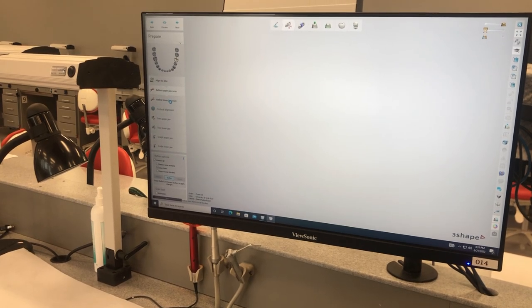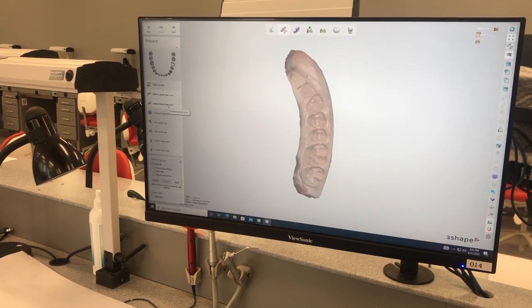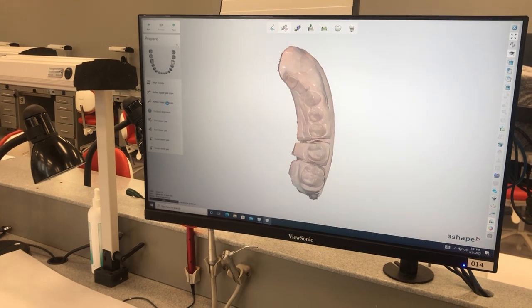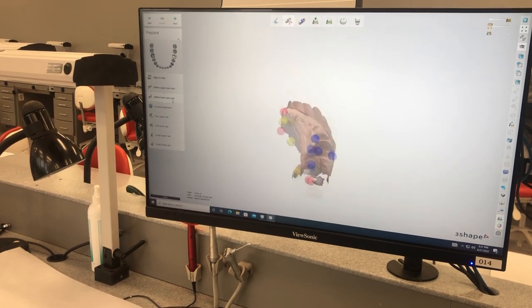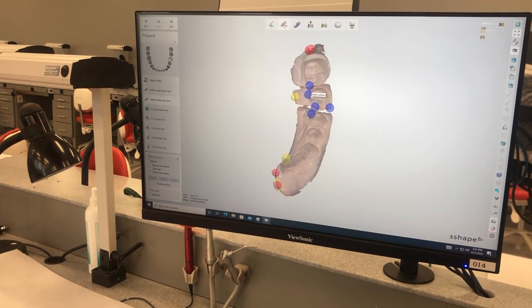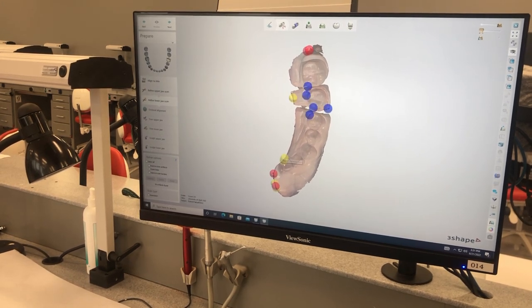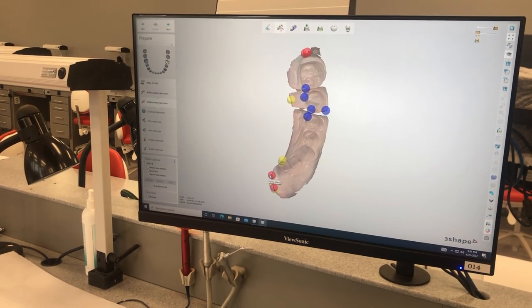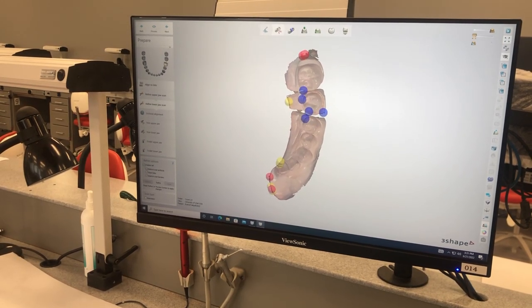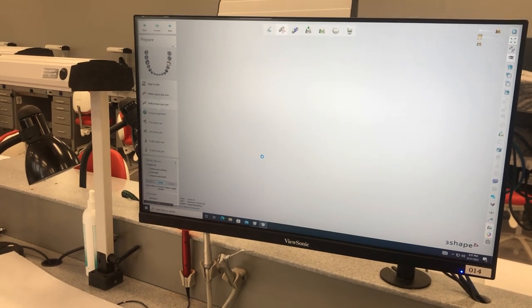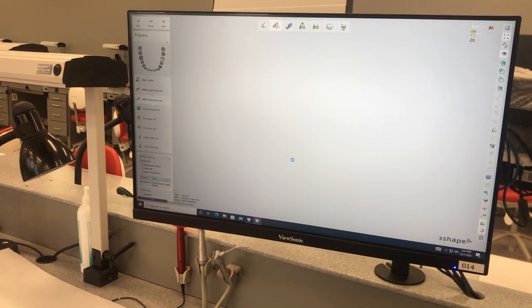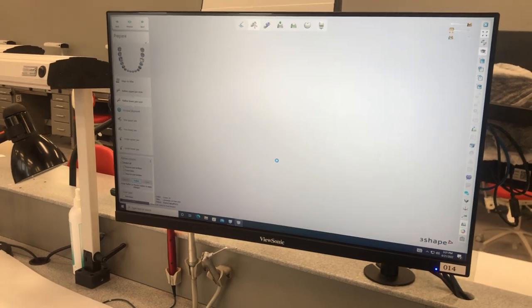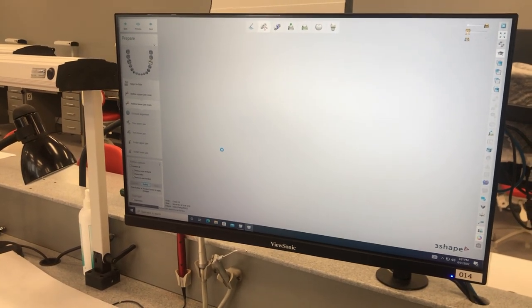I don't know if they showed you that in the previous lecture, so I just wanted to make sure. Then you're going to do the same thing on the lower arch. Again, it's not going to remove the blue ones. It's going to take away the red ones, which are these flying islands. It doesn't like those. The machine will give you a hard time.